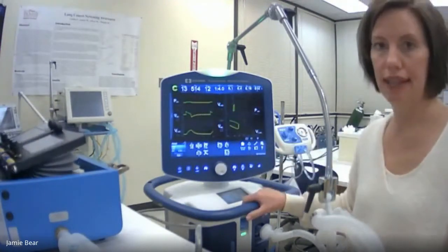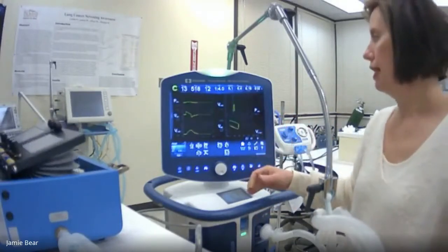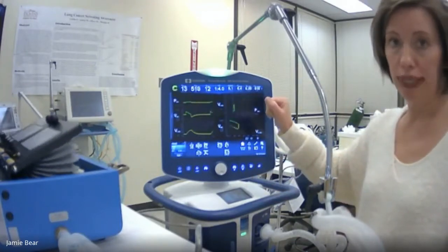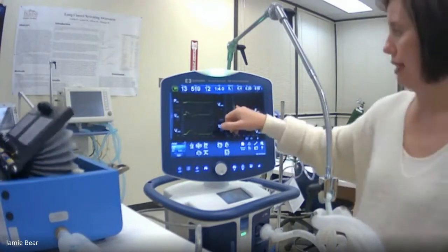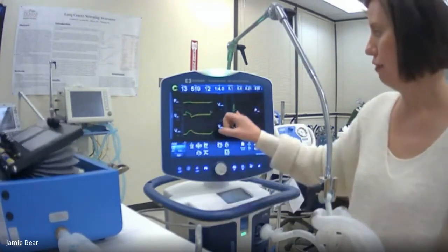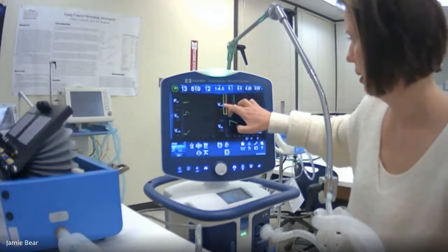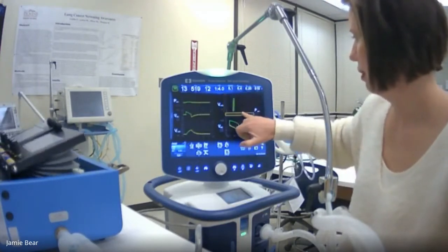And in here, we are looking at our pressure volume loop, and this is a great one to look at. So once again, the things that you can really identify with the loop are your lower and upper inflection points. You can see if you're getting any overdistension, as well as you can look at the compliance of the patient's lungs. So if we took, I'll do a couple of things here.